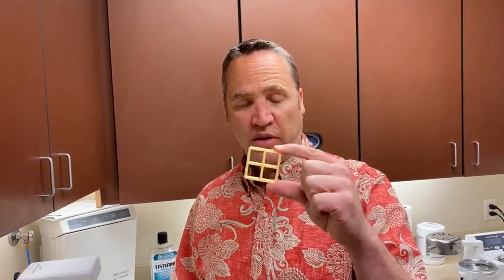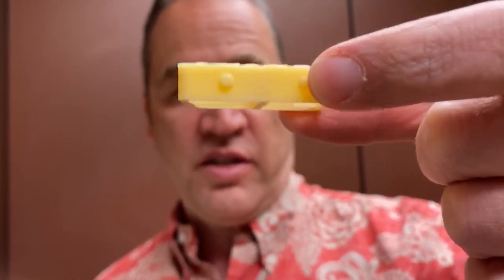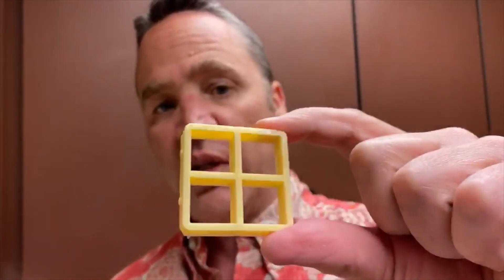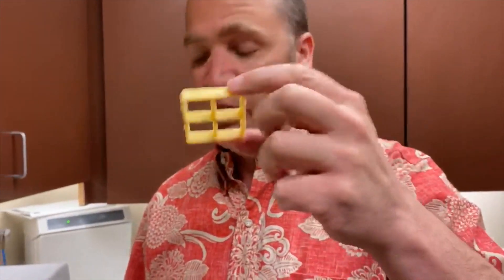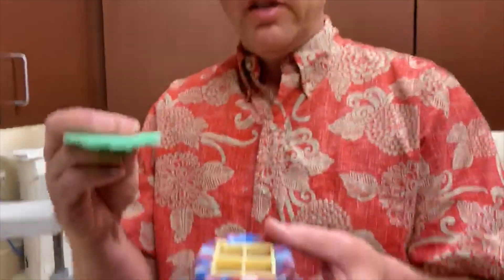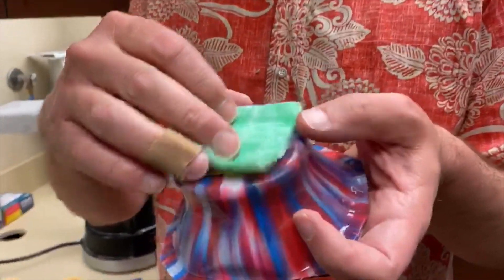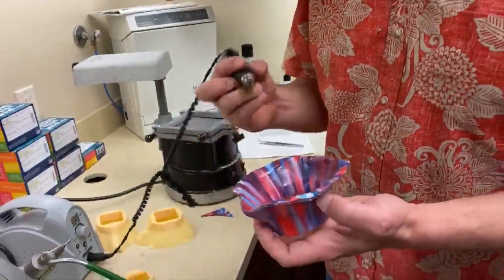We take this, which is another 3D printed part. These we can print really fast — 3D printing speed is based on how many layers it has, and because this part is short we can print six or eight of them every 20 to 25 minutes. It gets squished into the hole, and this is what holds the filter — the filter goes right there.